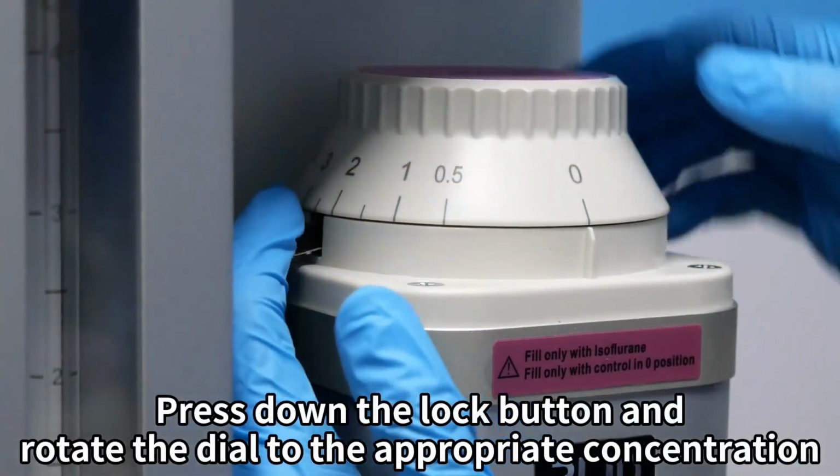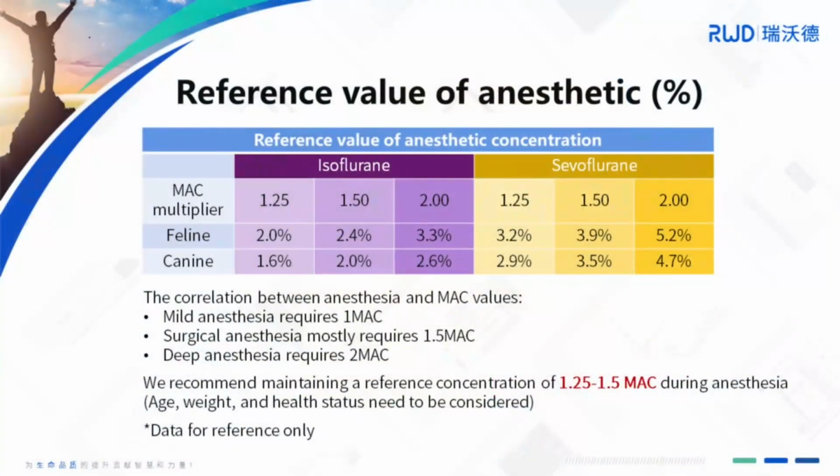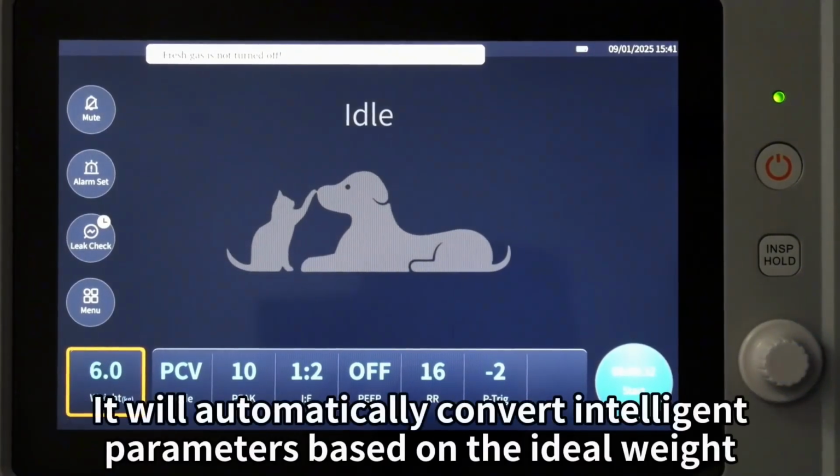Press down the lock button and rotate the dial to the appropriate concentration. Please check the reference value of anesthetic concentration as shown. Click the weight. Use the control knob to adjust. Press down for inputting. It will automatically convert intelligent parameters based on the ideal weight.